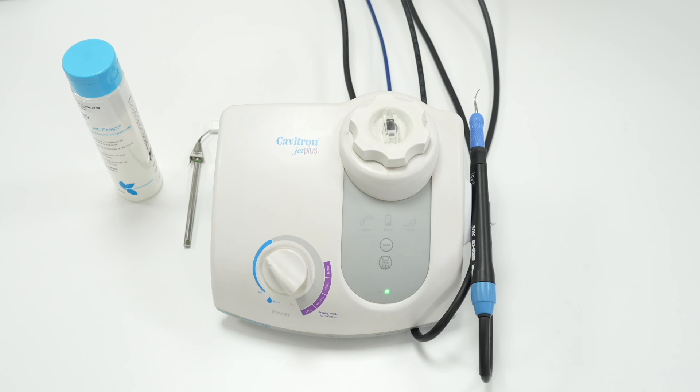If you see corrosion around the handpiece cable connection, please contact our service department for a service and repair quote.